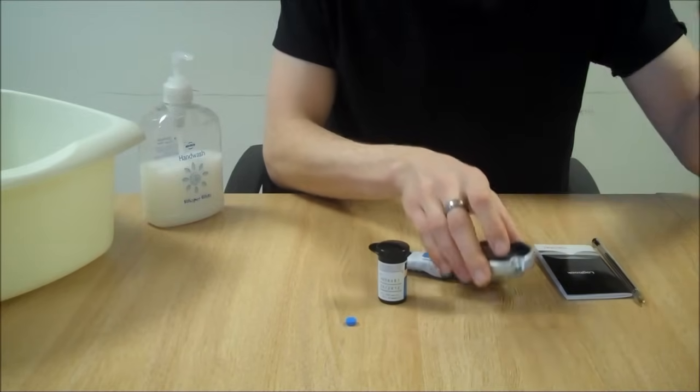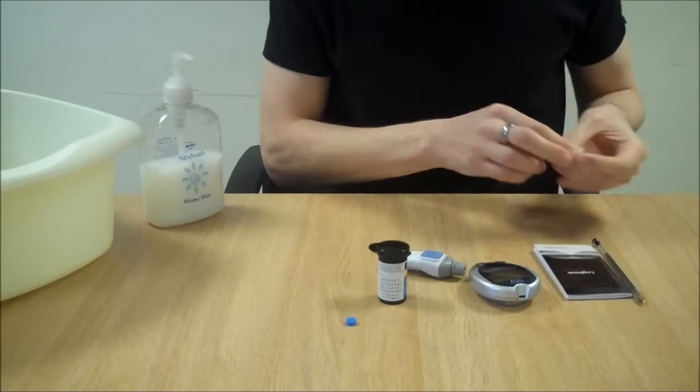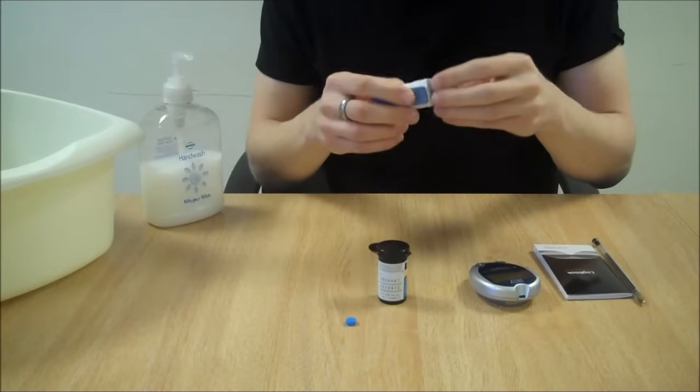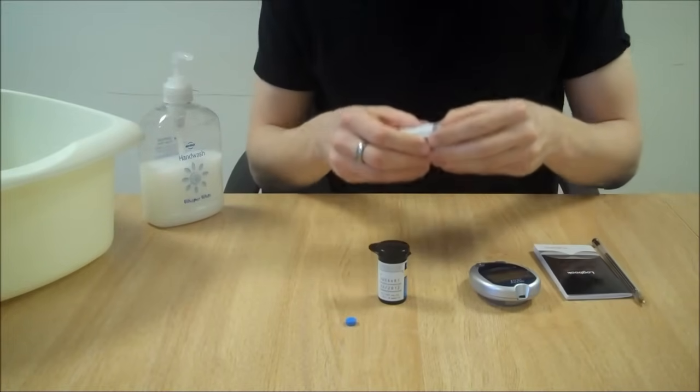Remove the test strip which can be thrown away. And make sure that the lancet in the machine is disposed of in a sharps bin.